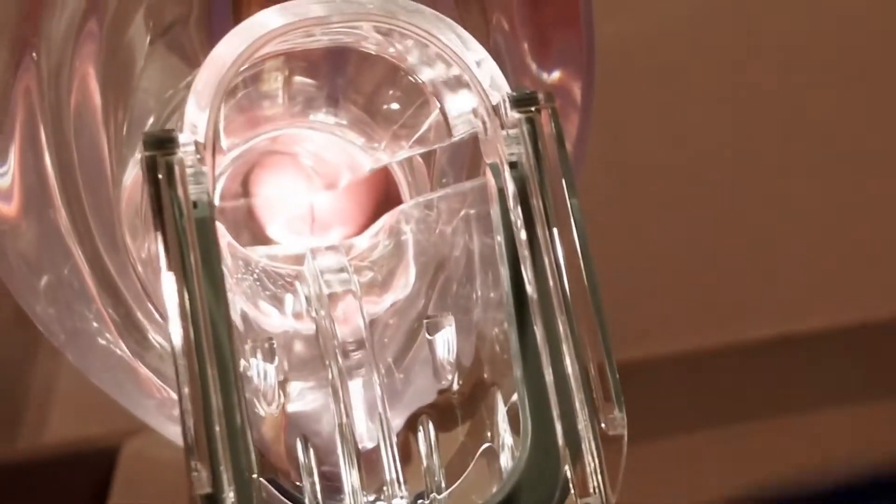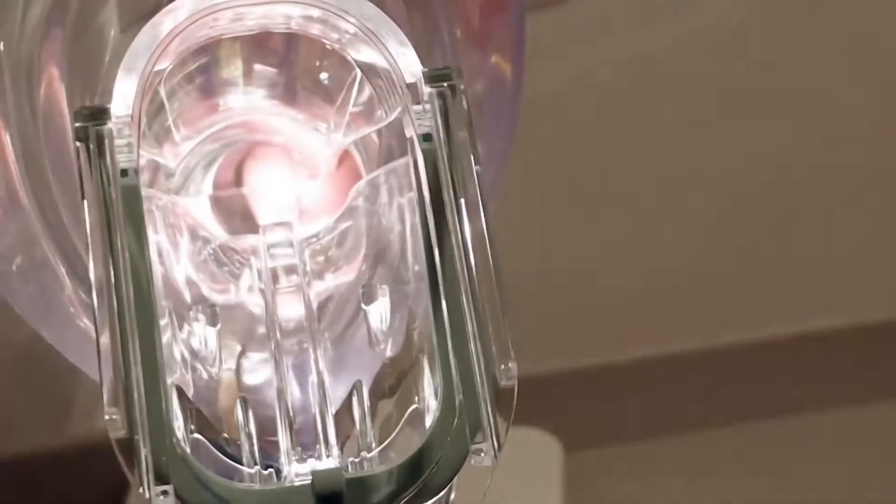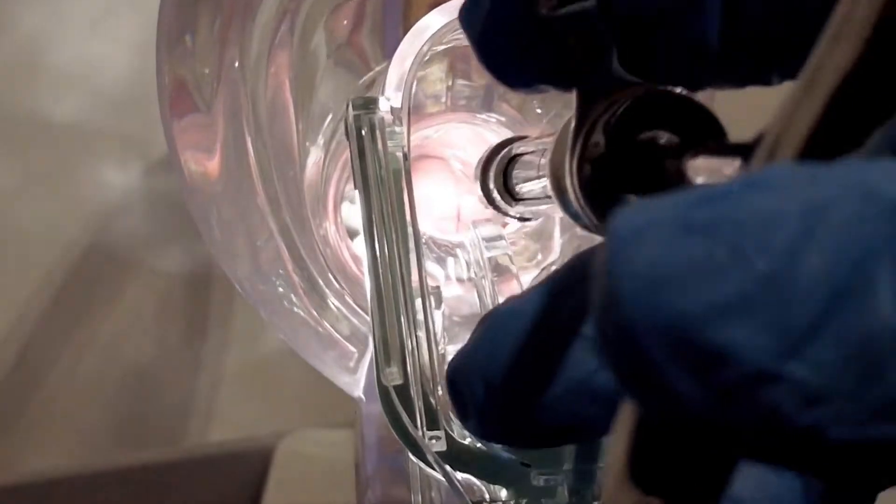So patient will be in the office lying down with the legs open. We'll use a speculum to open it up to see the cervix, then inject with a dental syringe into the cervix there and there.